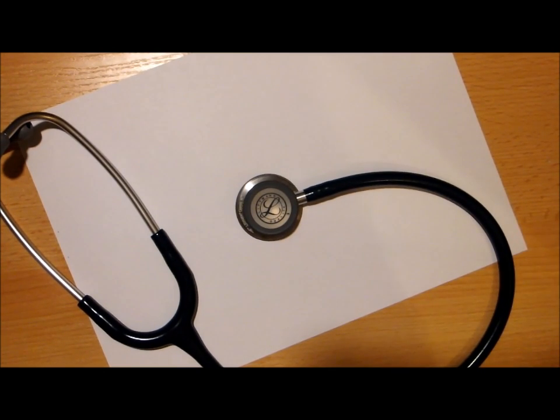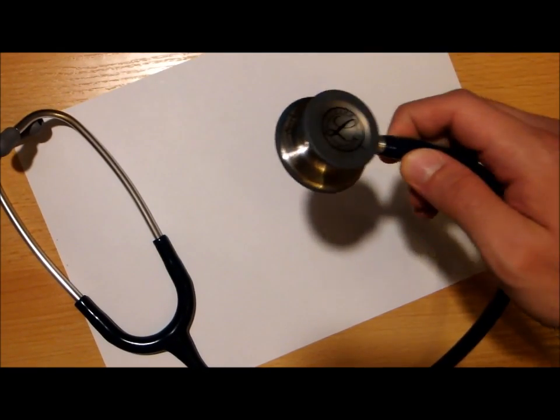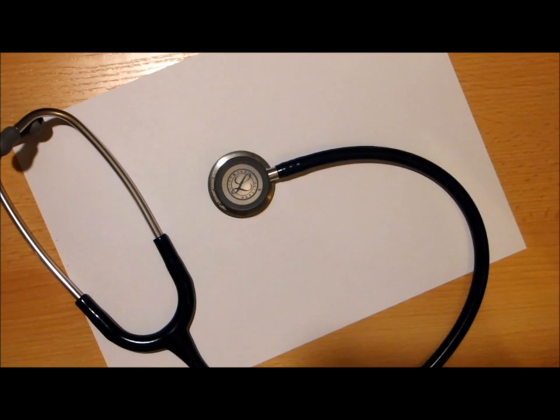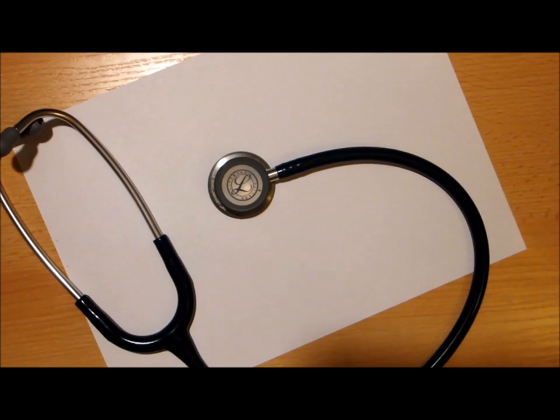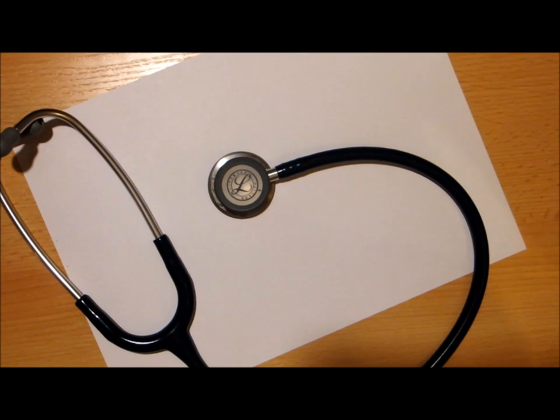This is my new stethoscope that was delivered to me today. After the first general check of my new product, at first I was very satisfied with the sound quality and transmission.